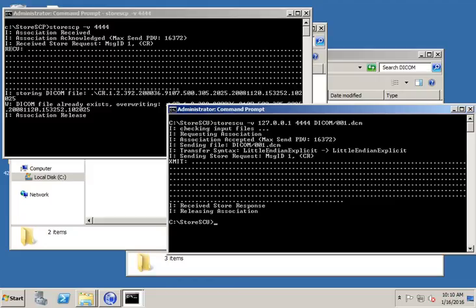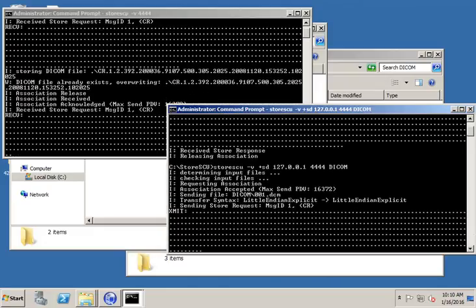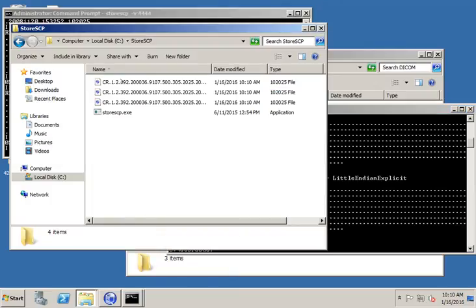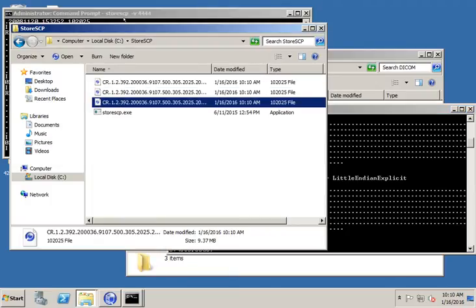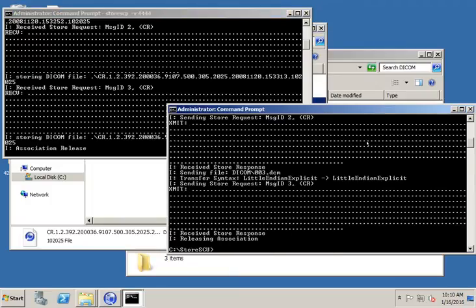But let's add one more thing here. Instead of just sending the one file, let's try to send the entire directory. So there is an option, which is plus sd, which stands for scan directory. And that will send all three files. So now when I go look in this directory, I have all three files. And you can see that storeSCP received all three files.